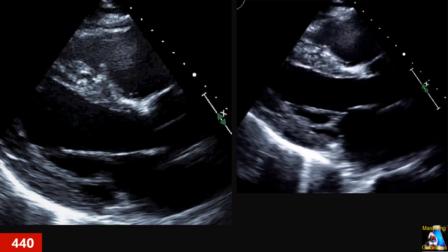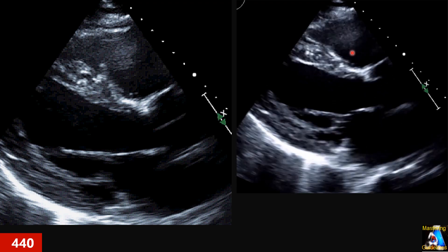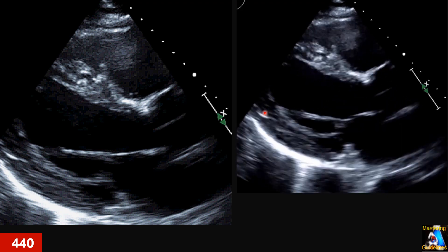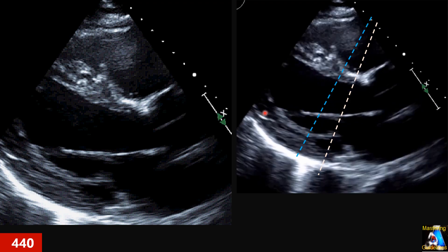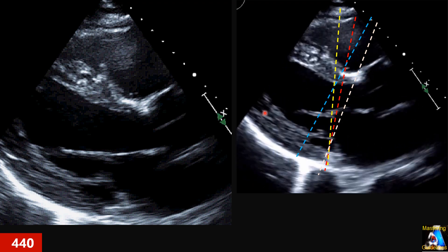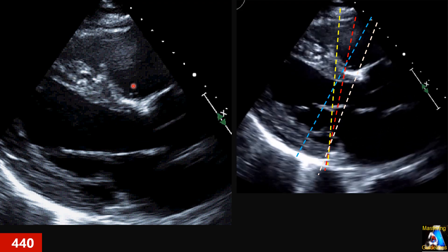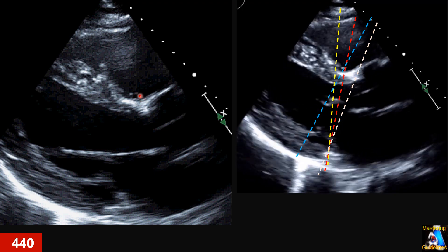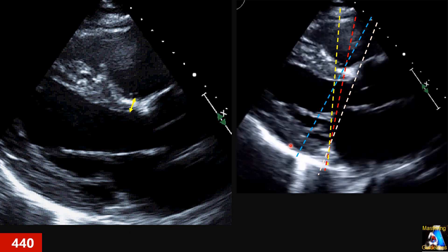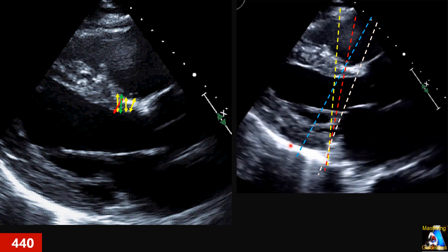Let's look at this first case. This is your best view on the parasternal that you can get. Now, which line do we use for measurement and which spot? This line? This line? This spot? Or this one? Or this one? Which one is correct, or what is the best approach? What about the measurement on the endocardium — do we include this structure or not? And what is the correct measurement? This one? This one? This way? Or this way? Or finally, this way?